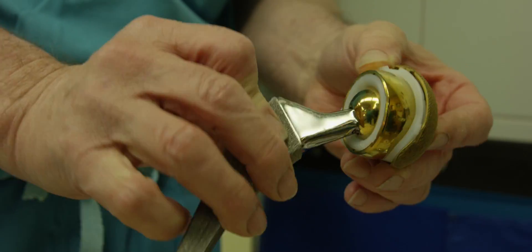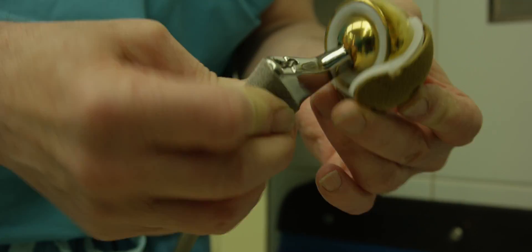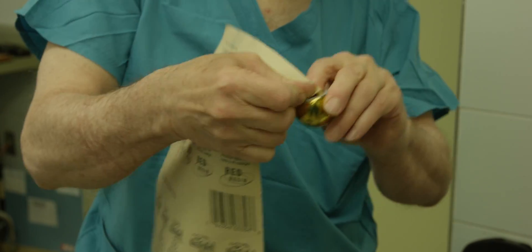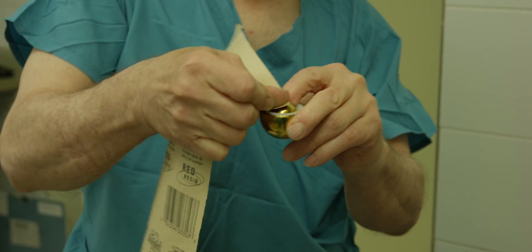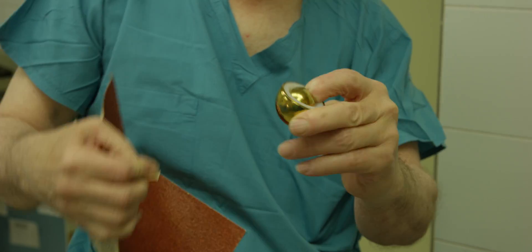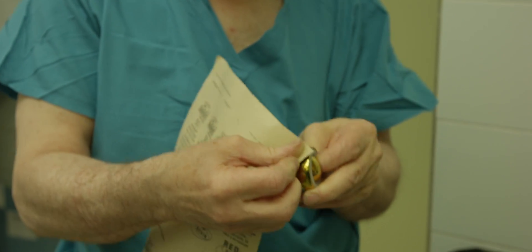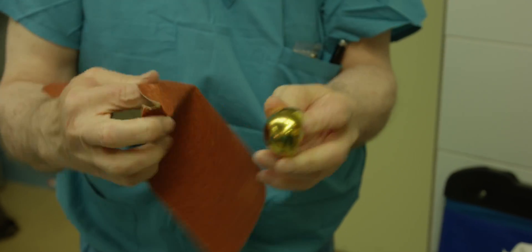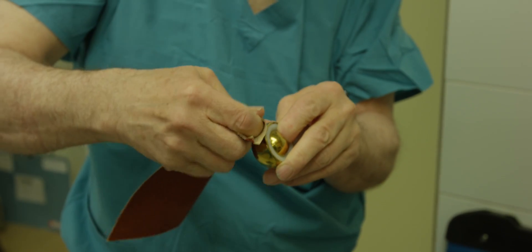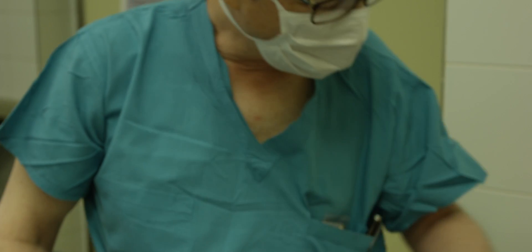Here's a bipolar femoral head. I'm going to do both parts of that — I'll put it on the inside, on the 28 inner bearing. I wasn't able to put a mark on it. On the outer bearing, I'll get a fresh part of the sandpaper again. Still couldn't put a mark on it.